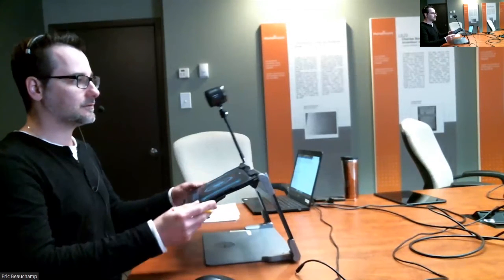So I have the student standing up or whatever. Bring it down, adjust it comfortably for the student so that he's or she's comfortable using it, and then adjust the little pencil so that you can write underneath. Okay, I have big hands here, but with small hands, I'm pretty sure they can put their small hands underneath and do whatever they'd like to.